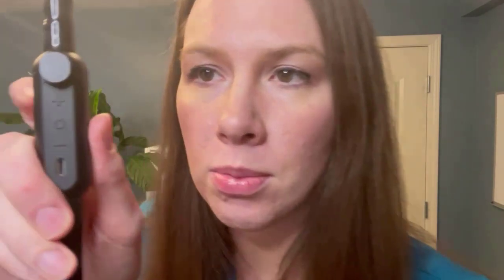So right now I'm going to listen. Sounds normal — sounds like I'm used to hearing. And then switching to digital... it's incredible. I can hear so much more. And do you see there's a volume button there, so I can even turn it up.